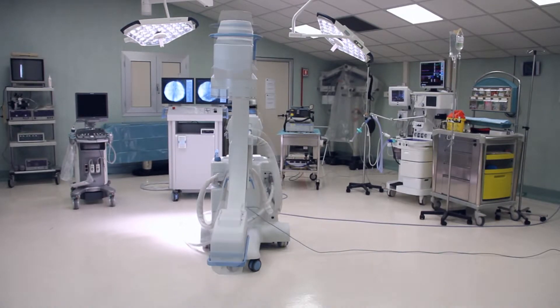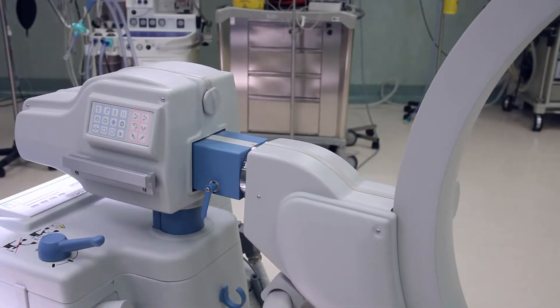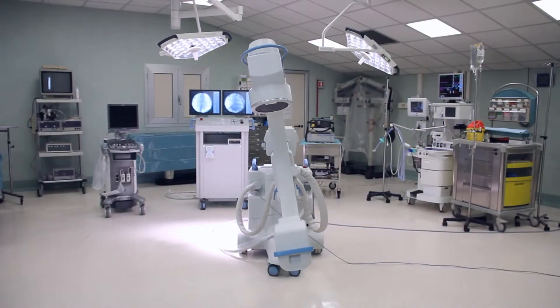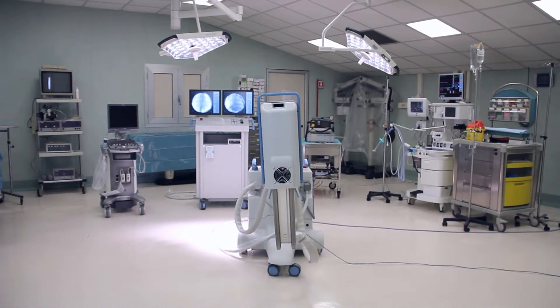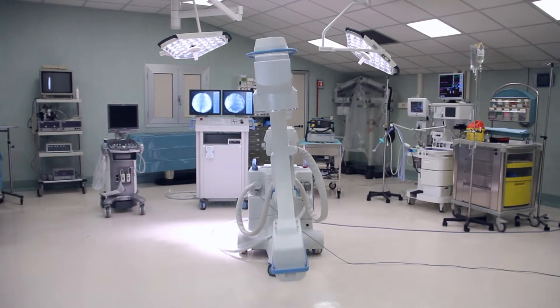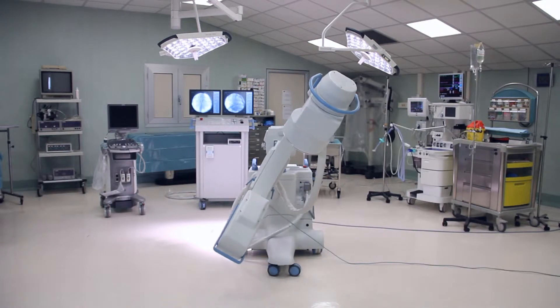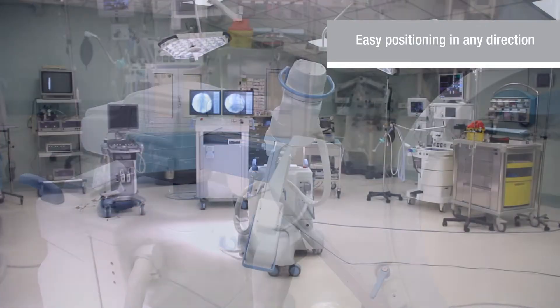The range of vertical movement is 500 millimeters. Horizontal stand movement is up to 175 millimeters. Orbital C-arm rotation ranges from minus 90 up to plus 45 degrees. Lateral C-arm rotation varies from plus 180 to minus 180 degrees.